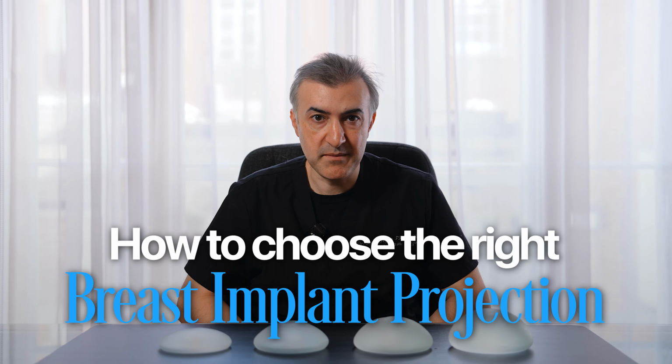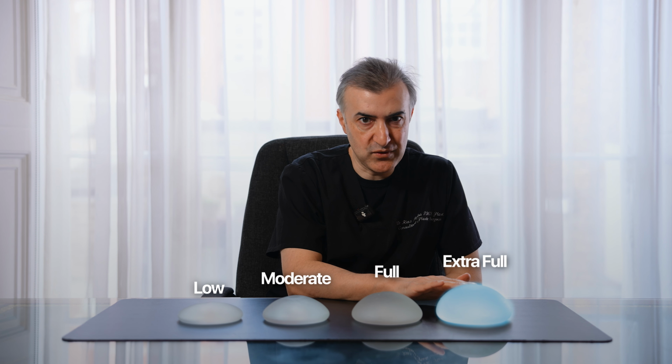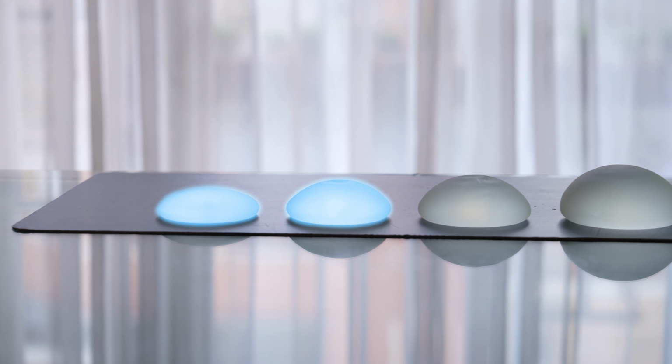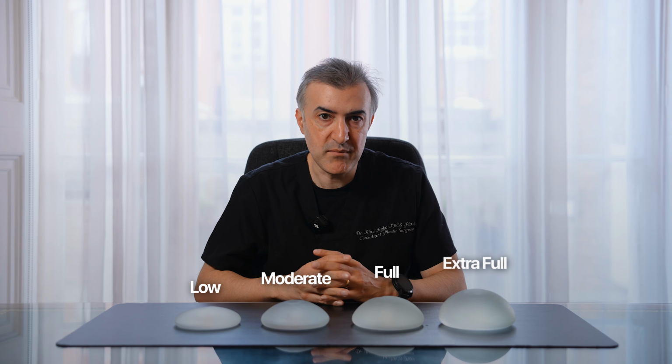So today we're going to be talking about projection with breast implants. Here we have a low profile or low projection breast implant, moderate, full, and extra full or extra high. Depending on which projection of breast implant you choose, they'll give you a completely different look. So let's compare them in today's video so we can see how you can select the right projection for you.